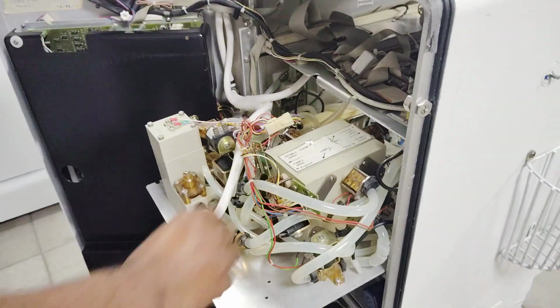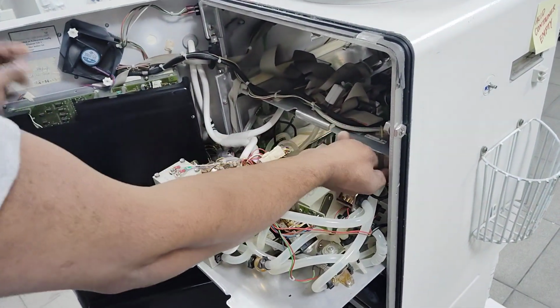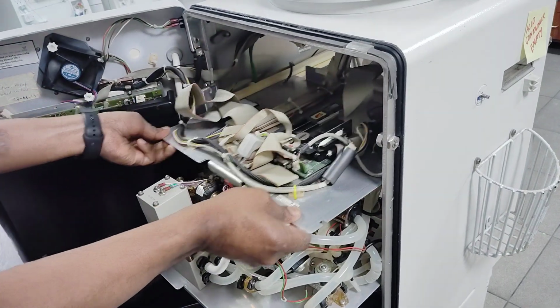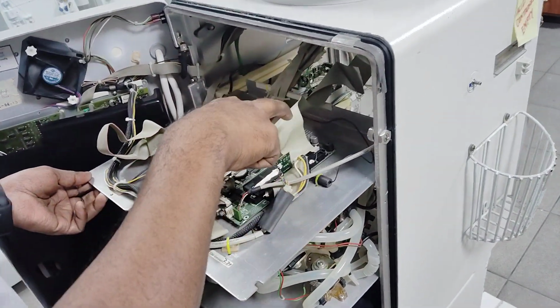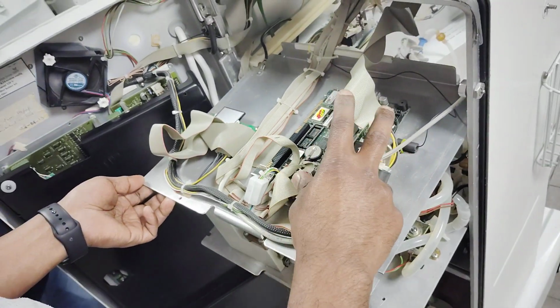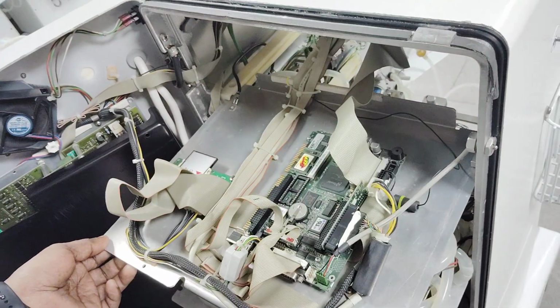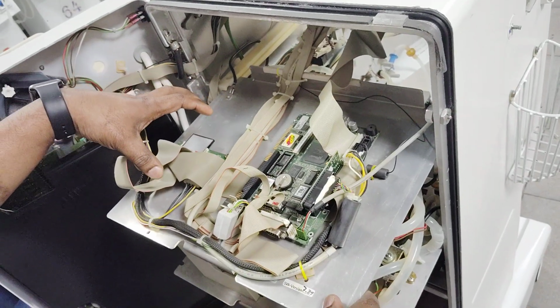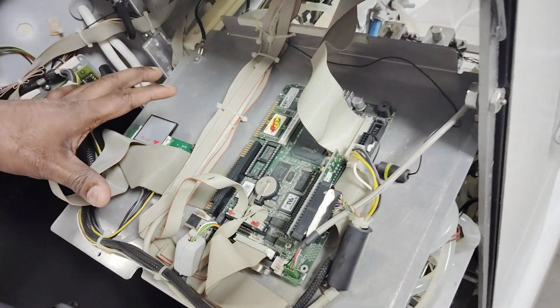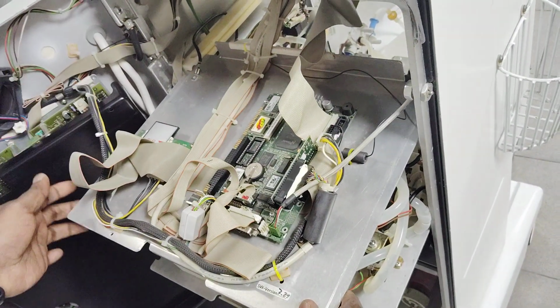This is what we call the top level. The top level has the motherboard. You can see this is the motherboard, and from that there is what we call the LVDS adapter, which gives the power to the LCD display. Before, we used to have a hard disk over there, and some machines still have it, but right now we are not using a hard disk. We have upgraded to the flash card.